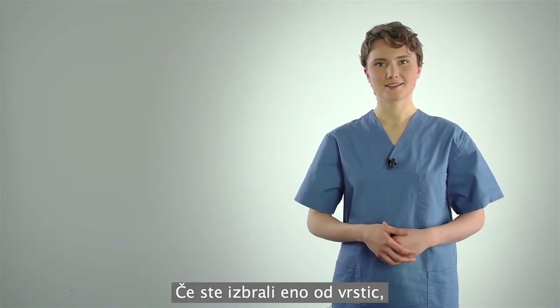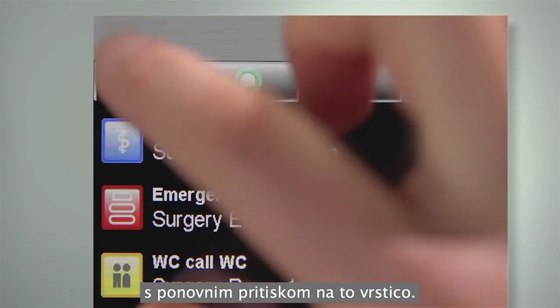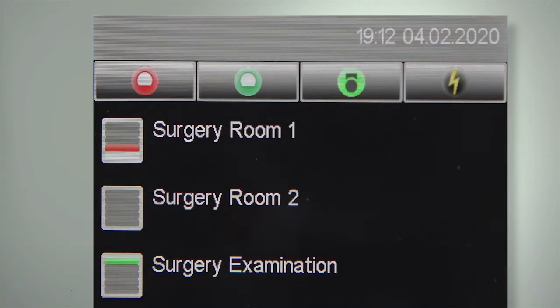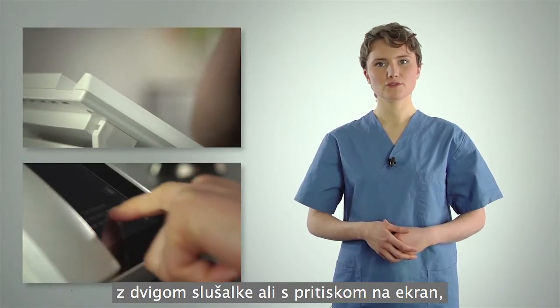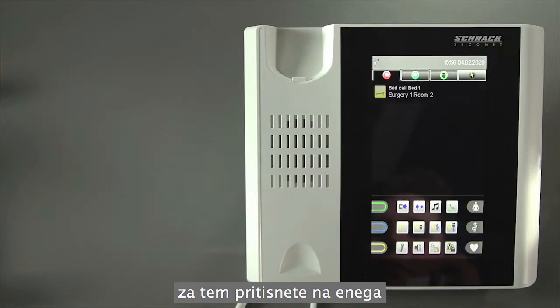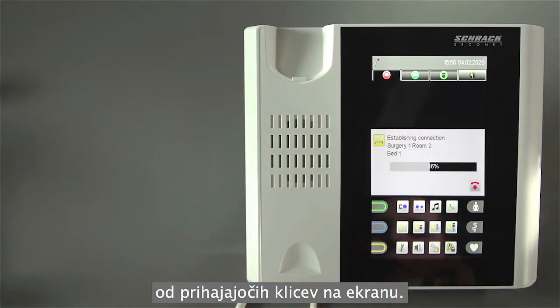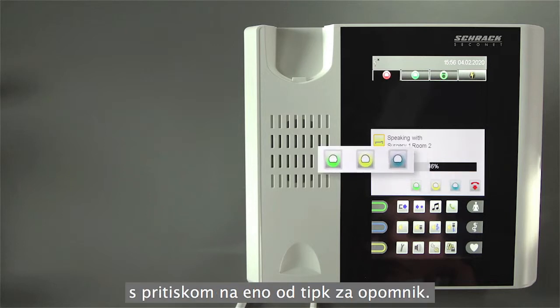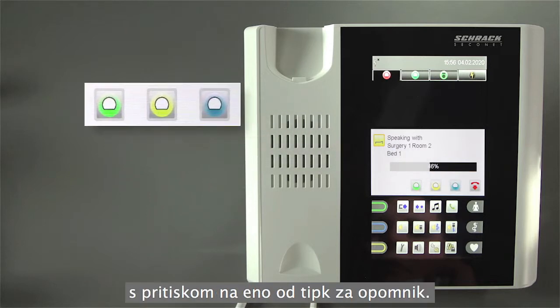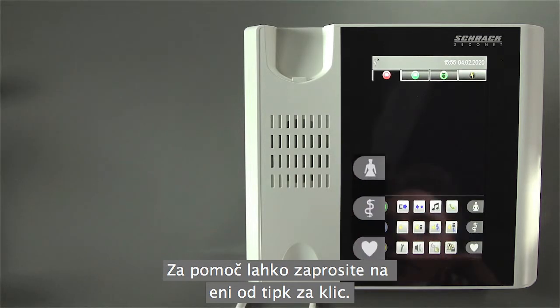If you have selected one of the tabs, you can access the complete room list by pressing the tab again. You can take incoming calls by lifting the handset or swiping across the display and then pressing one of the incoming calls on the list. You can set a reminder by pressing one of the reminder buttons. Support can be requested by pressing one of the call buttons.